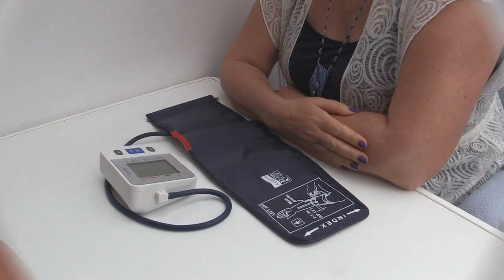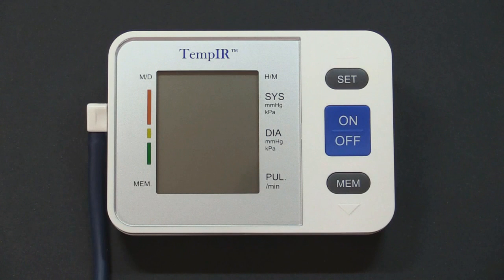For the best results, you should repeat the measurement 2 or 3 times, about 2 or 3 minutes apart, while still sitting at the table. As well as displaying the result, the monitor will save up to 90 readings with both their date and time.